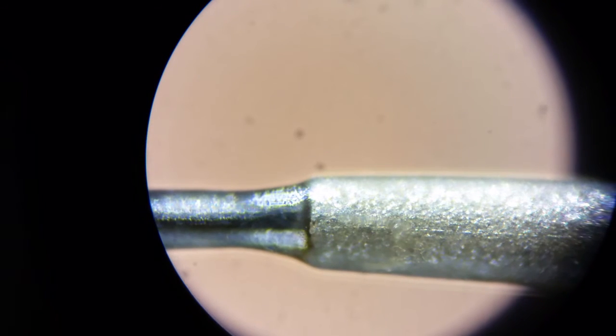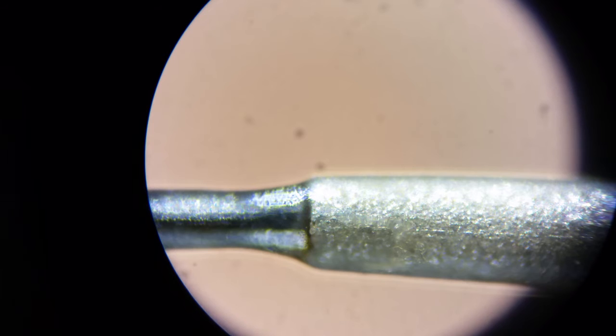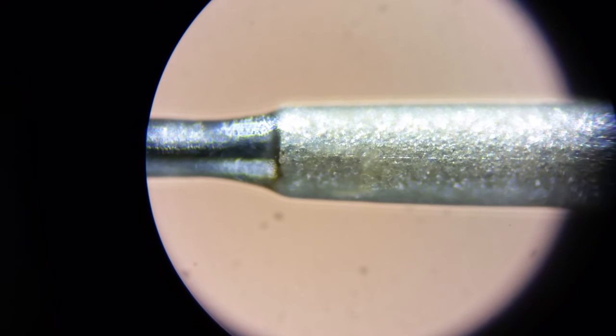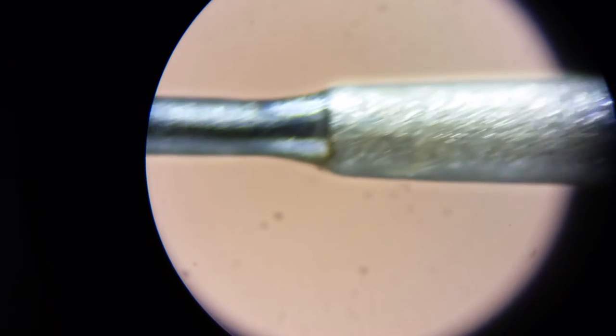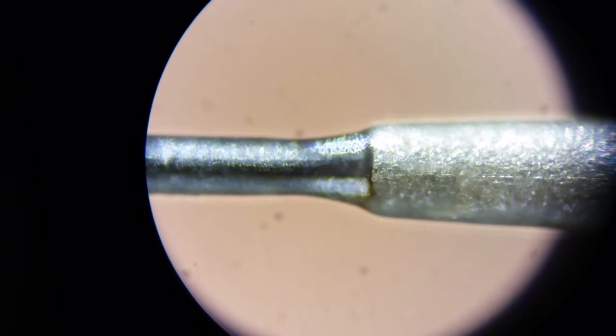Here we can see the white section is the, well, what you see is the white part of the lead after you pull it out, after you've done your injection and the sensor's gone bonkers after a couple weeks, hopefully three weeks if you've been following the other videos I've got posted up and others. But this is the white section that's typically exposed after you pull it out. And this will be just the tip.